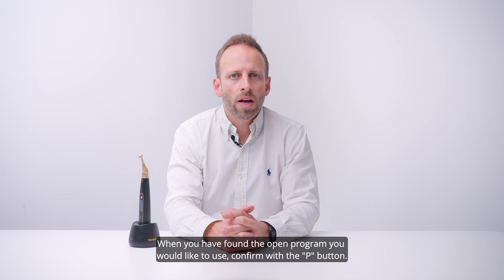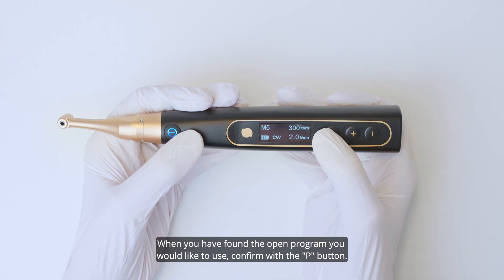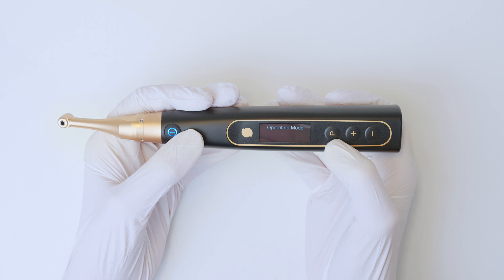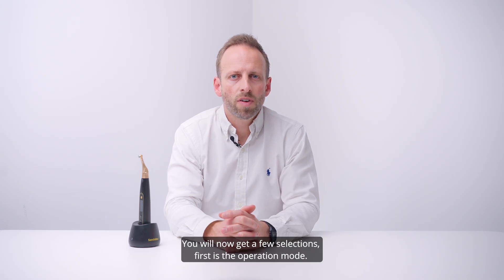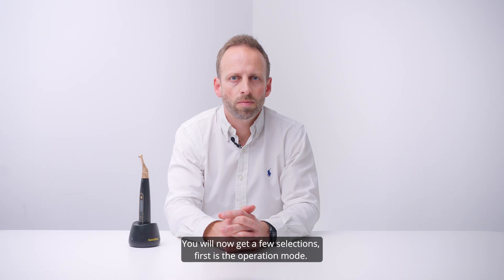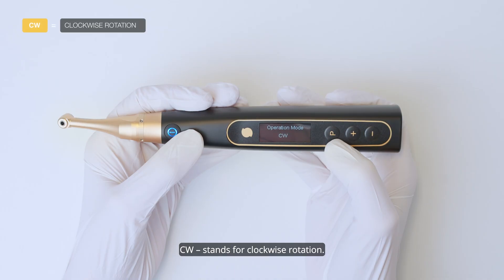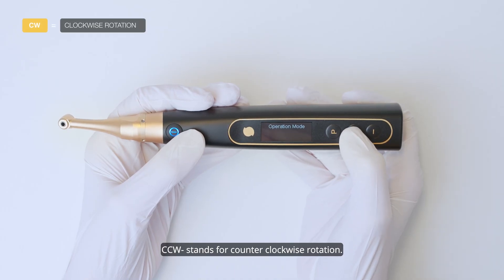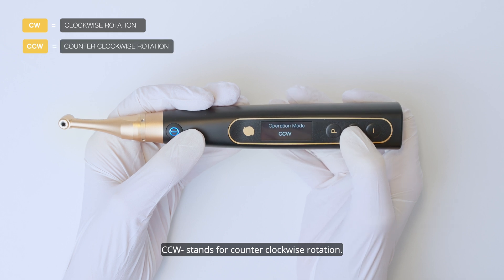When you have found the open programme you would like to use, confirm with the P button. You will now get a few selections. First is the operation mode. CW stands for clockwise rotation, and CCW stands for counterclockwise rotation.